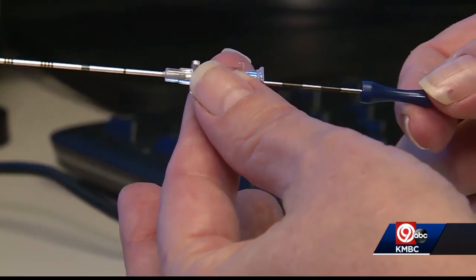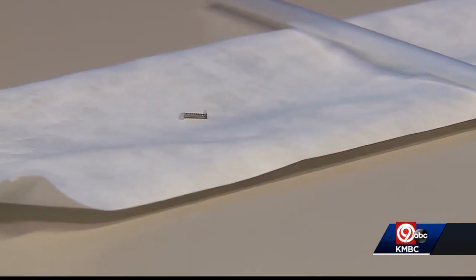It can be placed up to a month before surgery, so the day of is less stressful. We're always interested in adding any and every technology that improves the patient's overall experience and the ease of going through this difficult process.